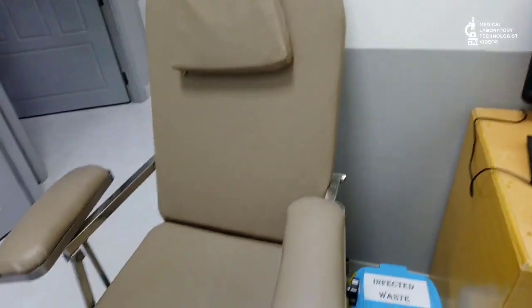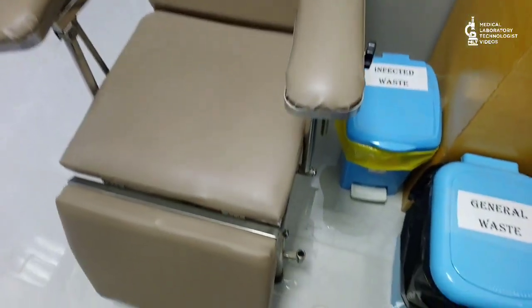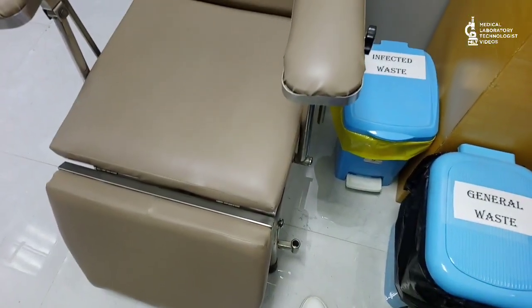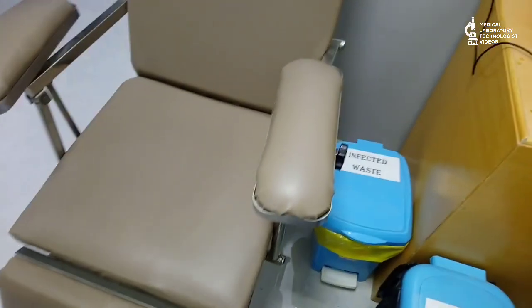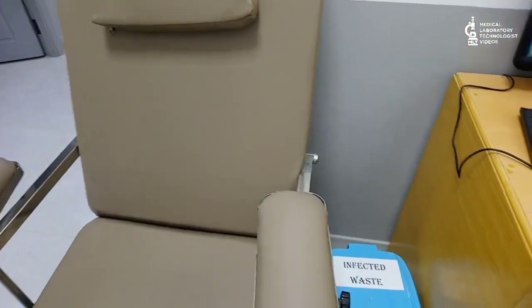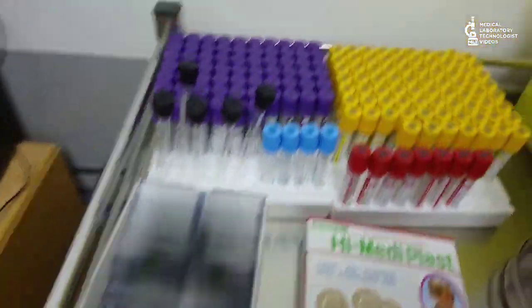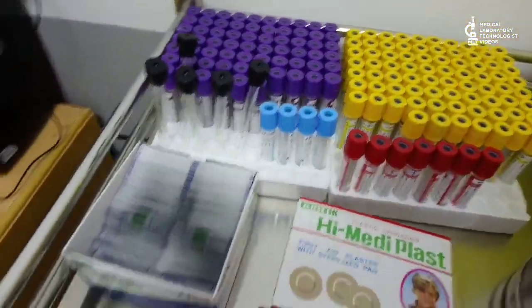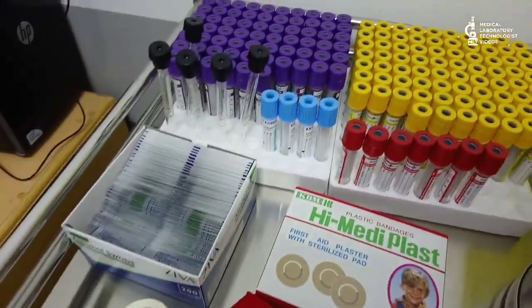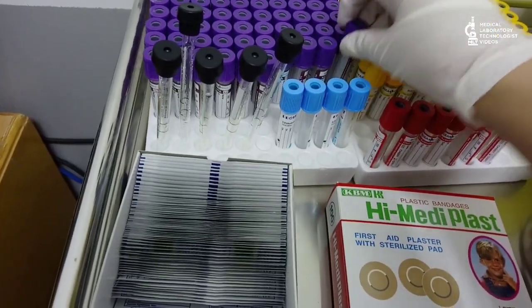This is the chair where the patient will sit and we will take the sample. How to take a sample I have already shown in my previous videos, which you can search on the channel. Now I will show you the tubes.